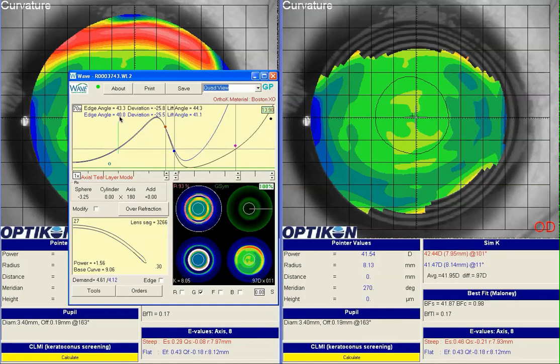Even if I went with the original edge angle of 43, by redesigning the lens with the edited topography we would still end up with a lens of about 100 microns less sagittal depth. We're getting about 200 total microns less because of the additional change to the edge angle. But I think going with 40, at least for this redesign, should work well.